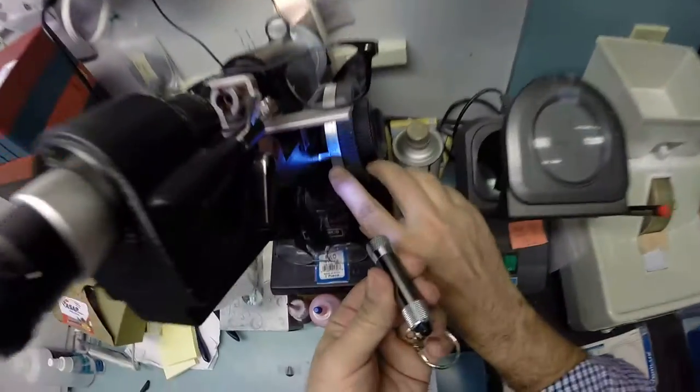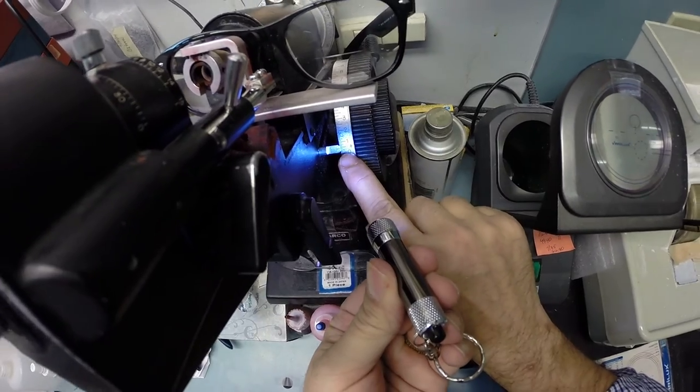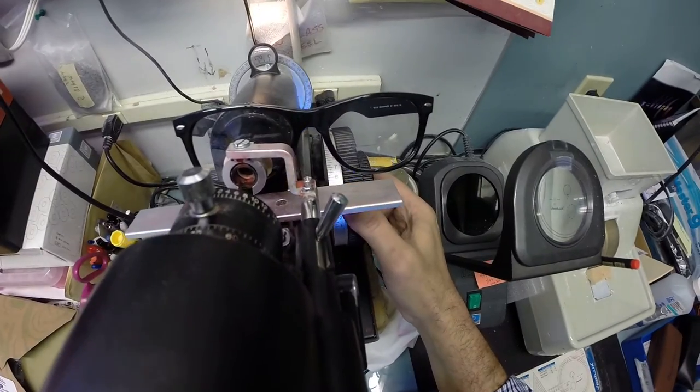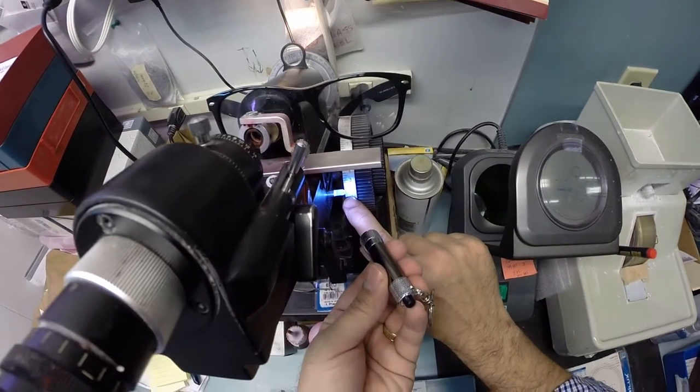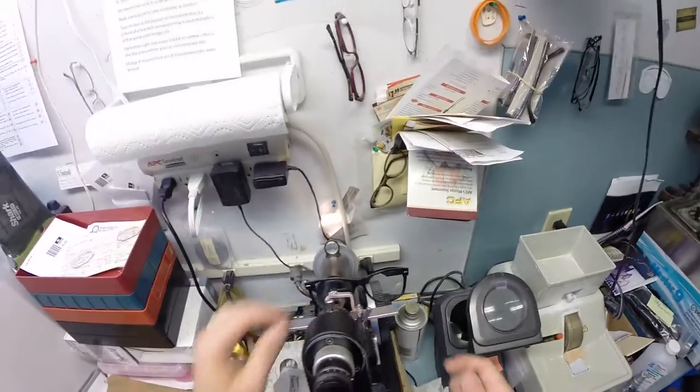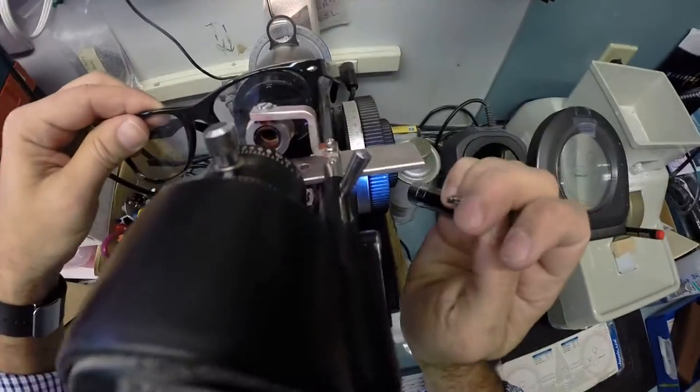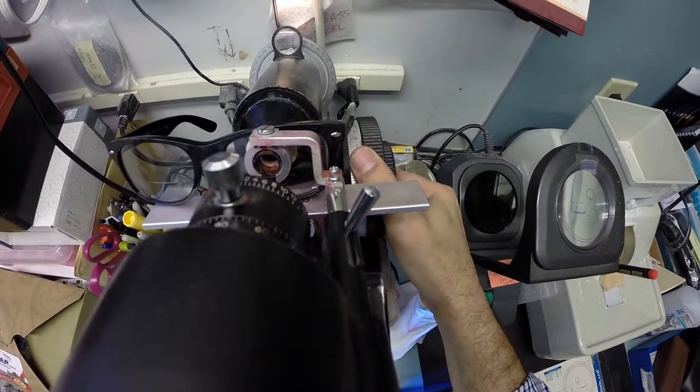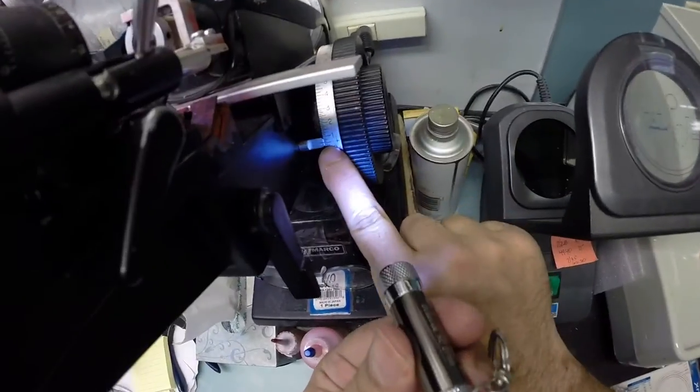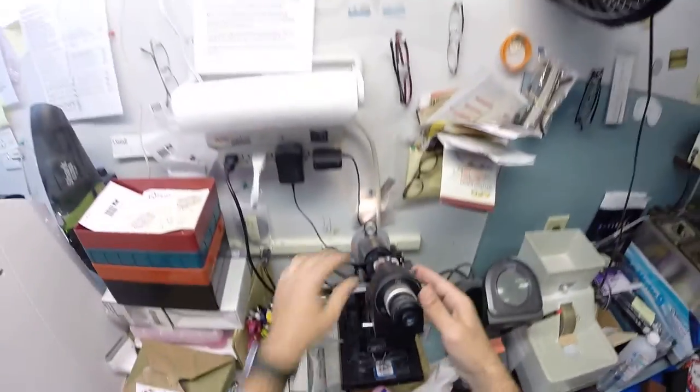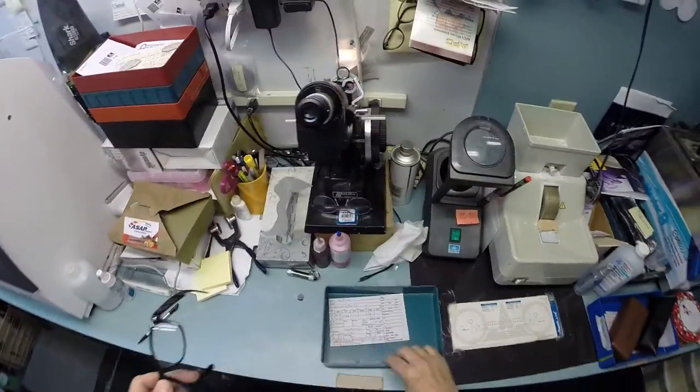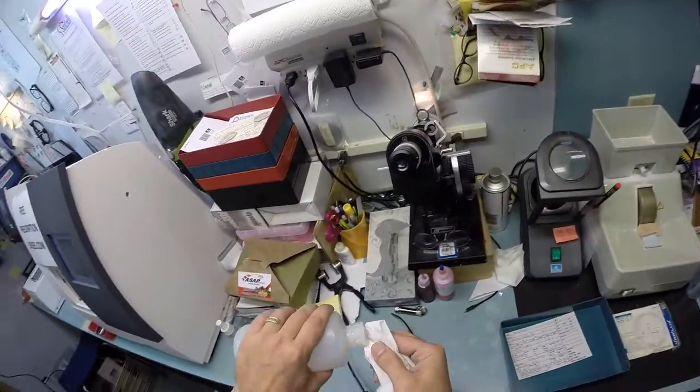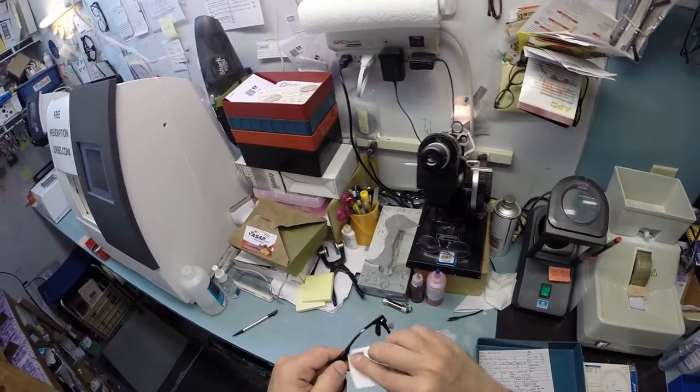I'm getting plus 50. Can you see that? That is exactly halfway between zero and one. I want to test the bifocal strength. I'm going to go up, pull it towards me, and I get a total power of 150, which is exactly halfway between one and two. Let's do the same thing for the left eye. Yep, that looks clear. Read the power in the top. And again, we're getting plus 50, which is two steps of magnification for your distance. The bifocal makes an additional one diopter of power, which gives you a combined power of 150 in your reading.